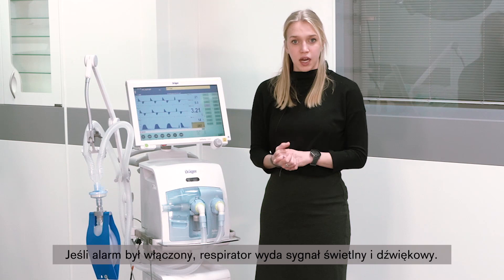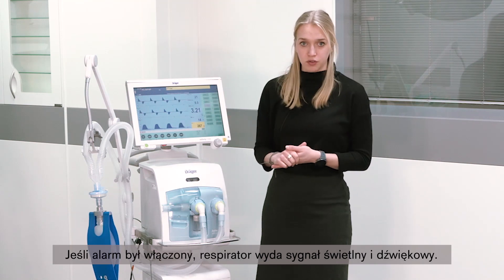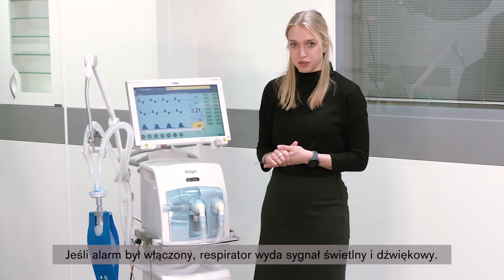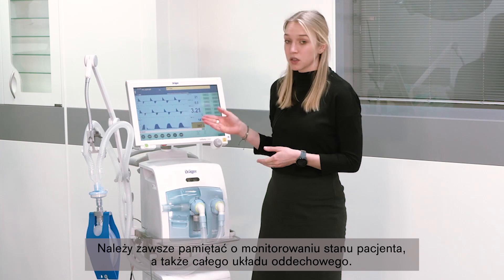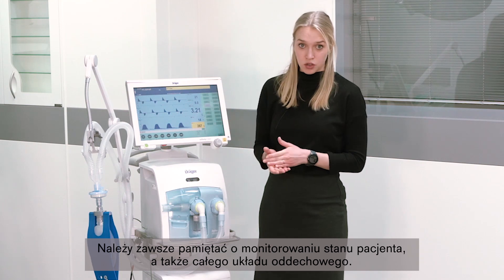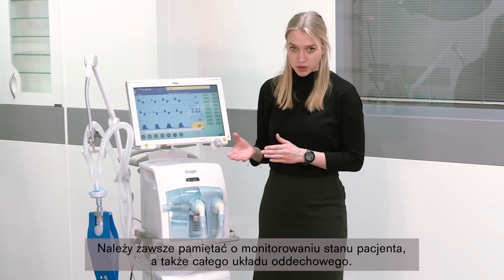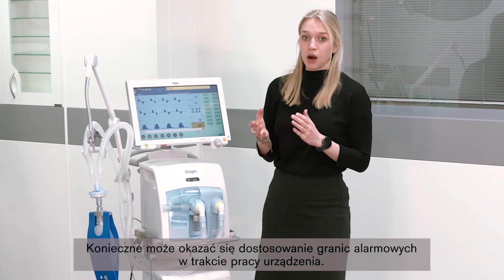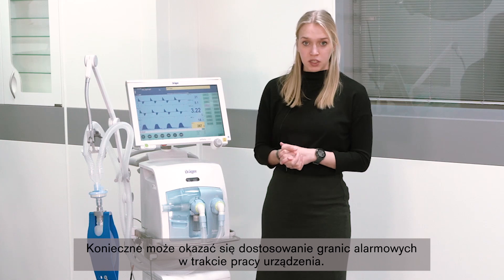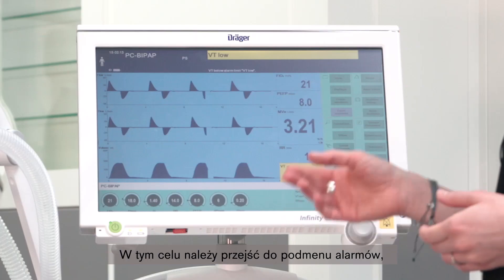If an alarm is present, the ventilator will give you a visual and an audible feedback. Please always check the condition of your patient and of the whole breathing circuit system. However, it might become necessary to adapt alarm limits during operation.